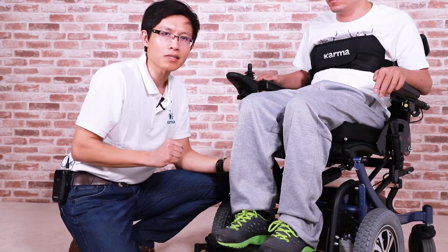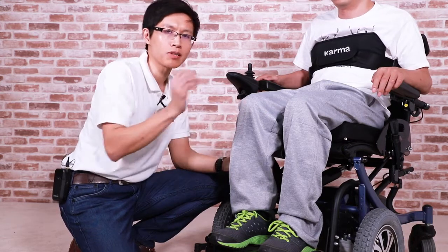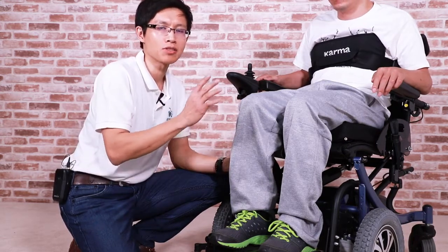Another useful tip to know if someone can use a standing wheelchair is by asking them if they've used another standing device or ramp before.